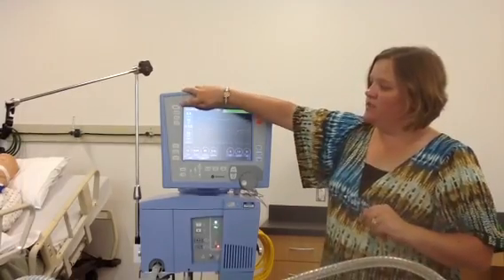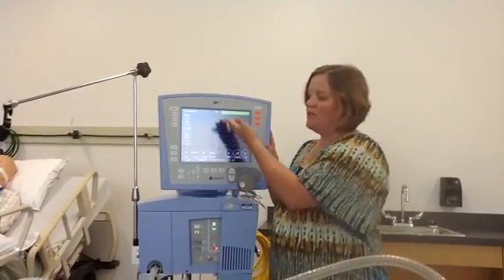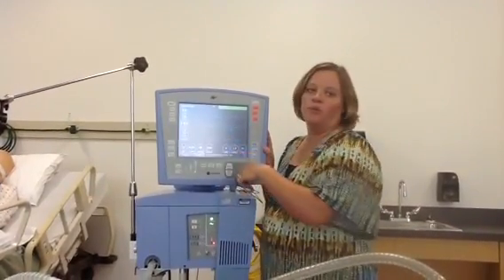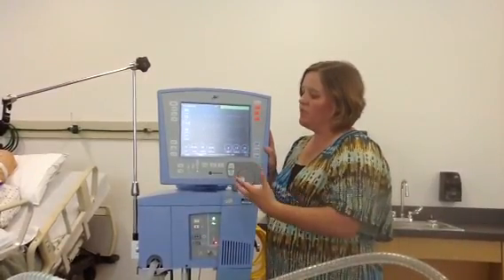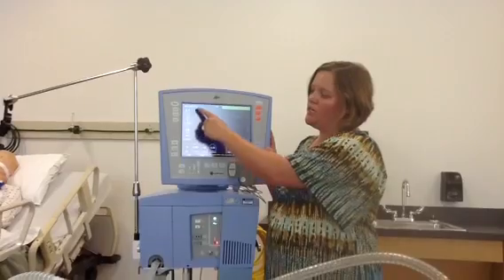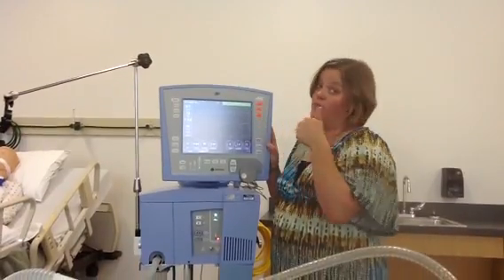The first thing I want to point out is that we have a main button here. Any time you want to get back to the main screen, you push this main button. The main gives you your three scalar graphics plus whatever you've set up on the side, so you know what's going on with your patient. Your mode is always displayed in the top left corner, and the top right corner always gives you the status of your alarms — green means good.